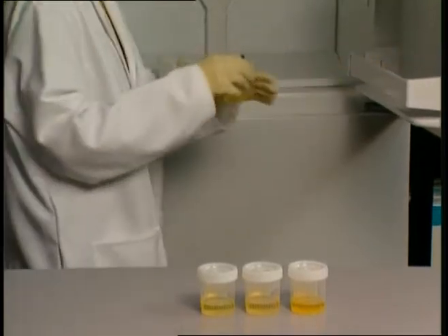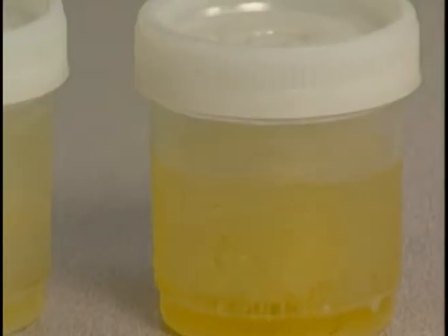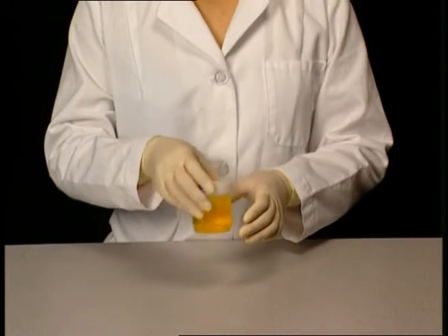Previously frozen specimens must be thawed, brought to room temperature, and mixed prior to use.